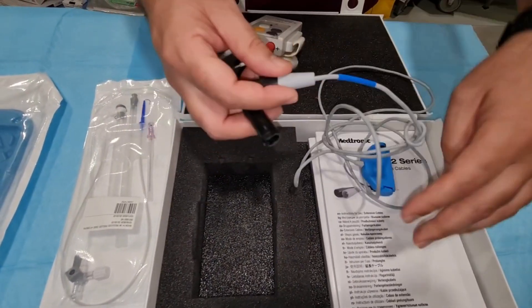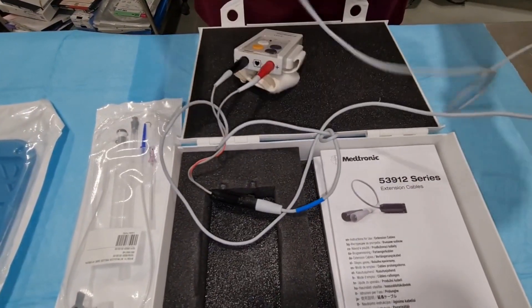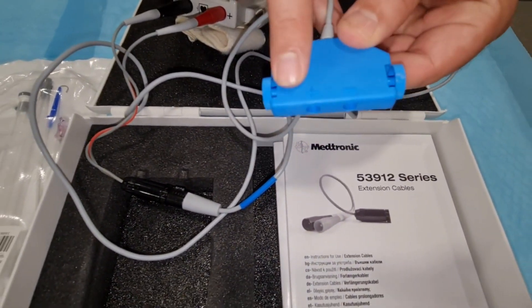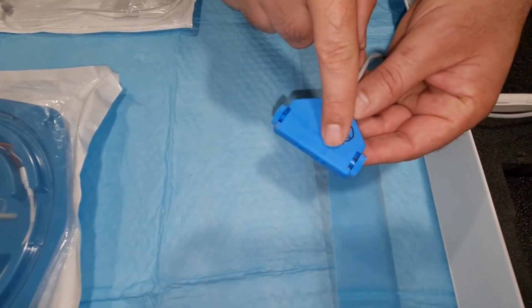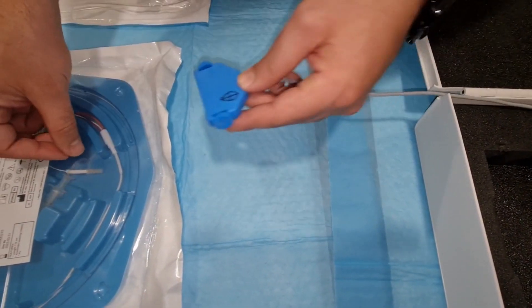There is another connection. Now, as we can see here, avoid pulling. One is positive, one is negative. The positive is for the red and the negative is for the black. As you can see this connector, one is for positive and one is for negative.